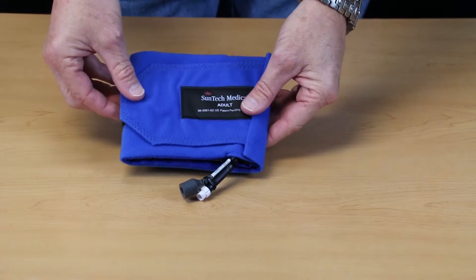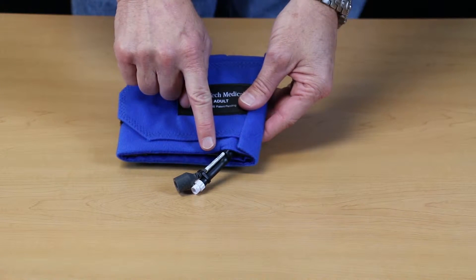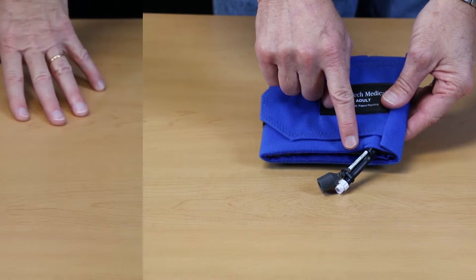For the microphone, look at the cable by the microphone connector for the date code label. On this label, you will see the week and year of manufacture. If the microphone is more than a year old, or if you are not able to read the date due to continuous cleaning, it's time to replace your microphone.